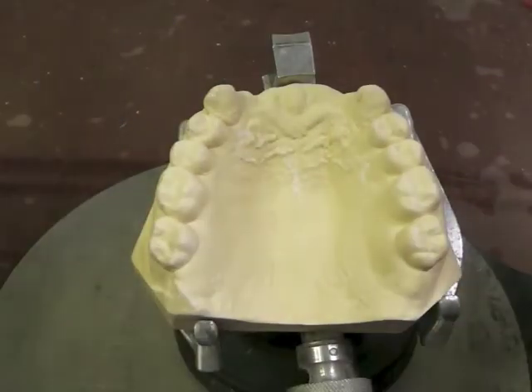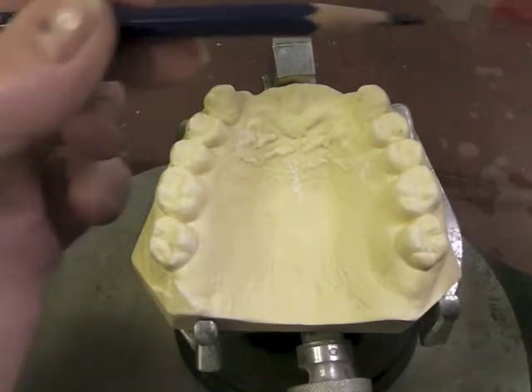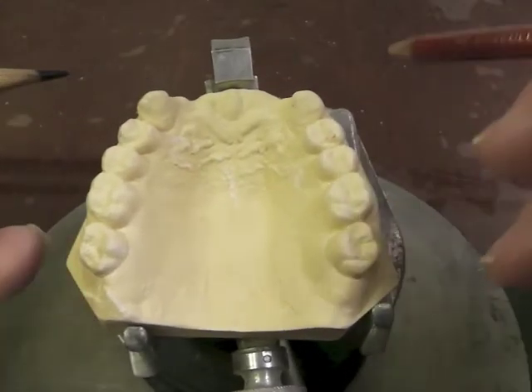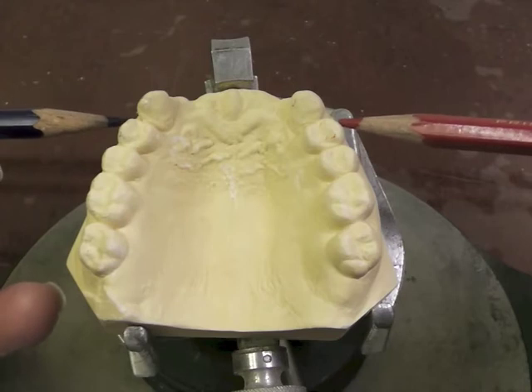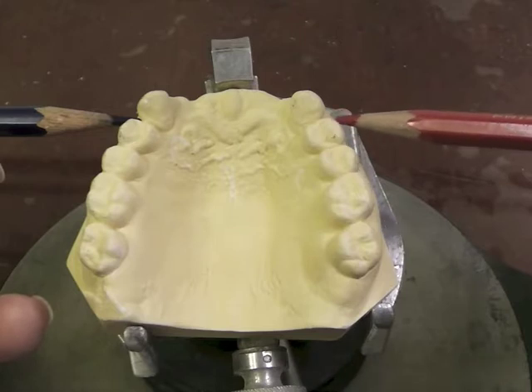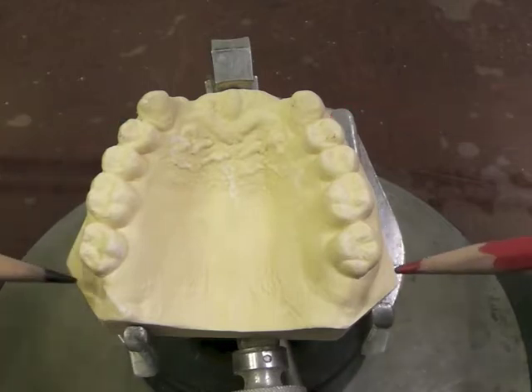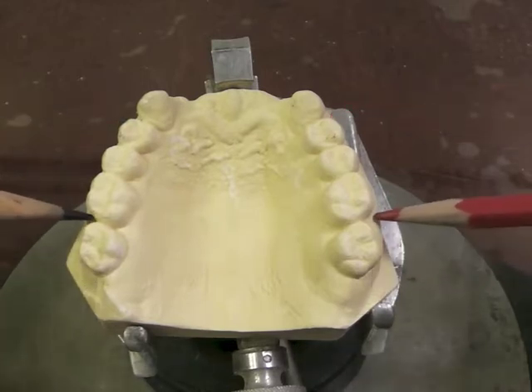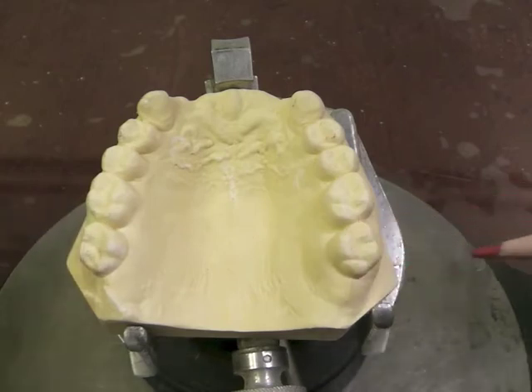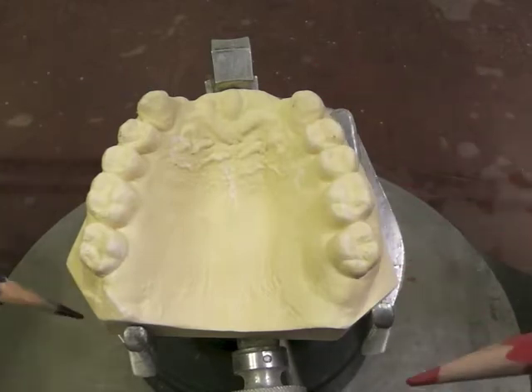We want to eliminate poor aesthetics if possible, but still keep that mechanical advantage. So if aesthetics is an issue, we're going to think in terms of moving back one tooth. We're still keeping our direct retainer close to the fulcrum line, but not quite anterior to it, and we will look for a .01 undercut on the mesiofacial of the first premolars. We'd also look for .01 undercuts on our first molars, since there may not be one on the second molar. Our ultimate goal is to separate retention as much as possible.